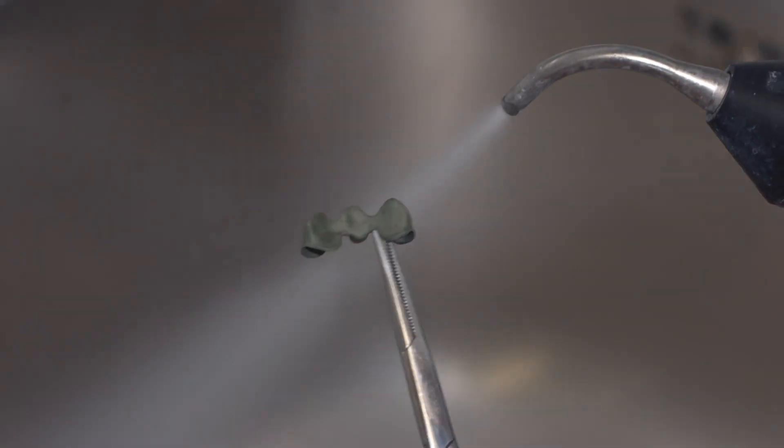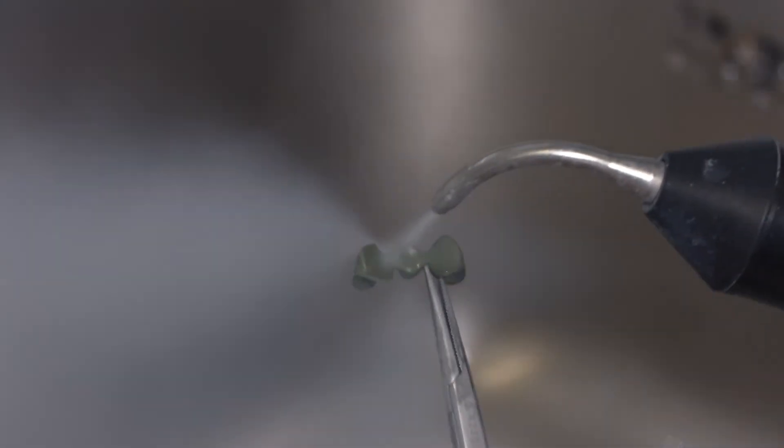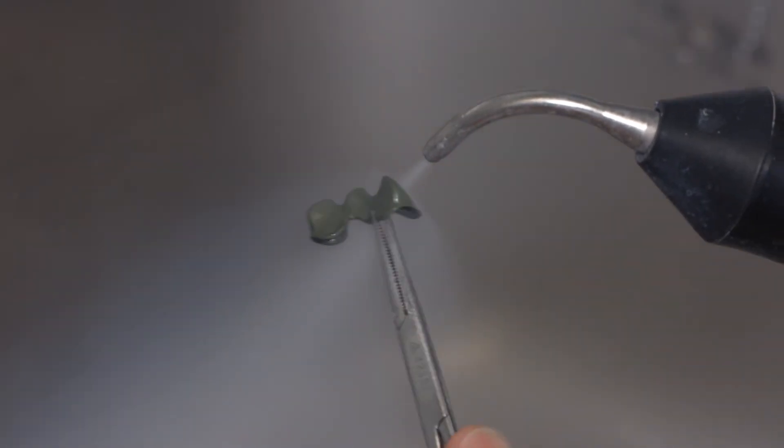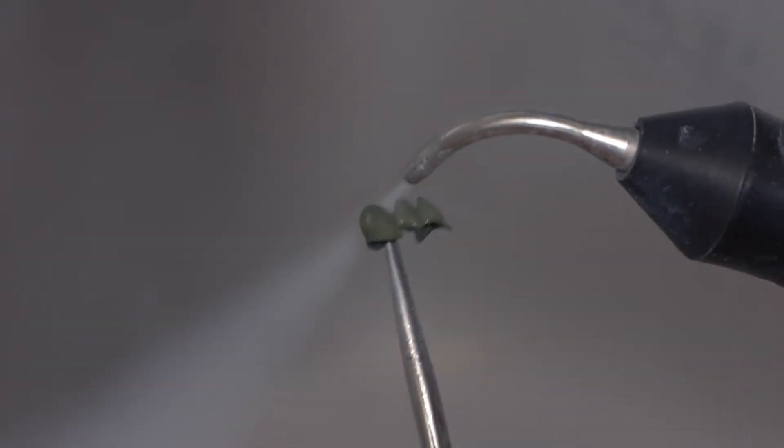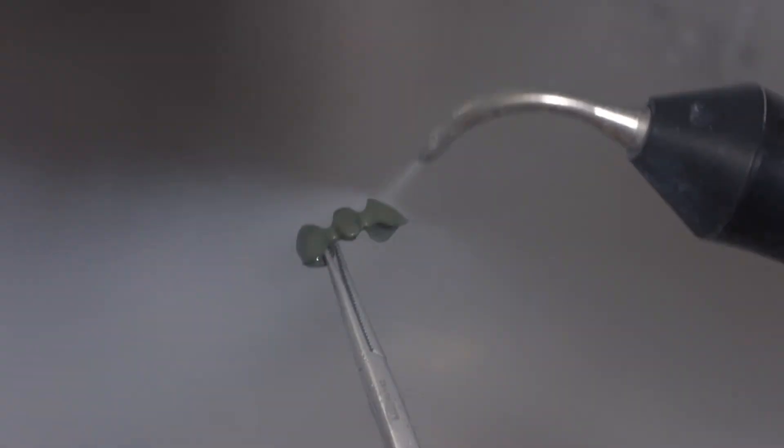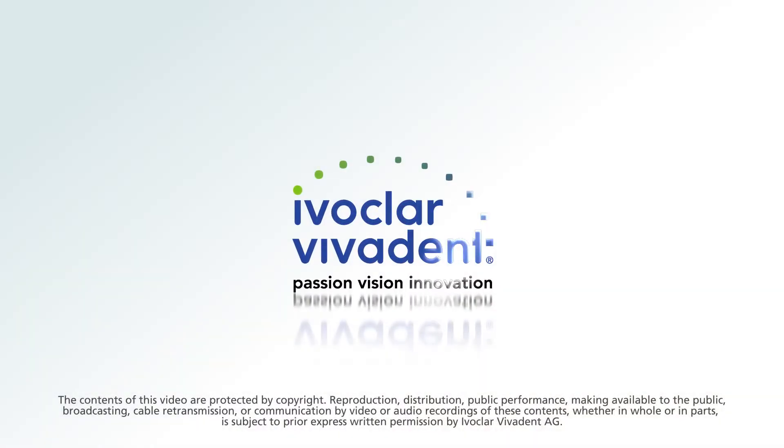Clean the framework again with the steam jet. Do not touch the framework with your fingers after cleaning. Instead, use tweezers and clips to handle the framework.